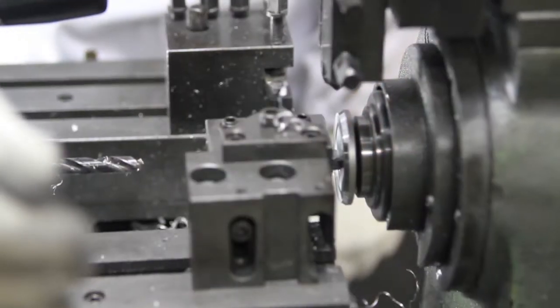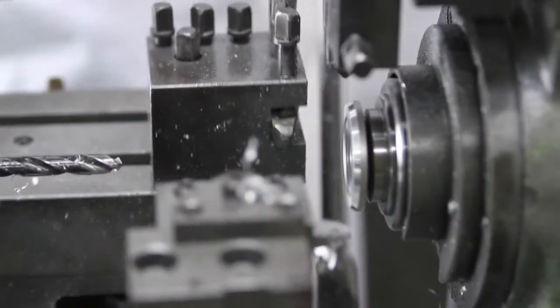This remained our guiding force when we set out to create what is now known as the MDF 797X CardioX Stethoscope. Our engineers sought to develop a very sleek and lightweight cardiology stethoscope, but still maintain that range and clarity like a traditional cardiology model.